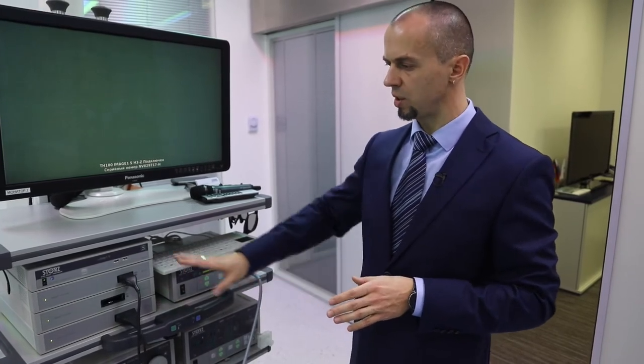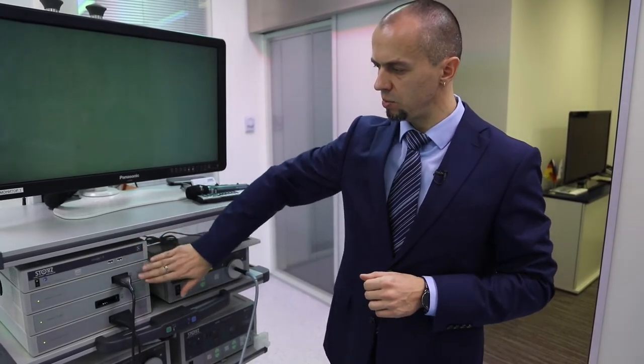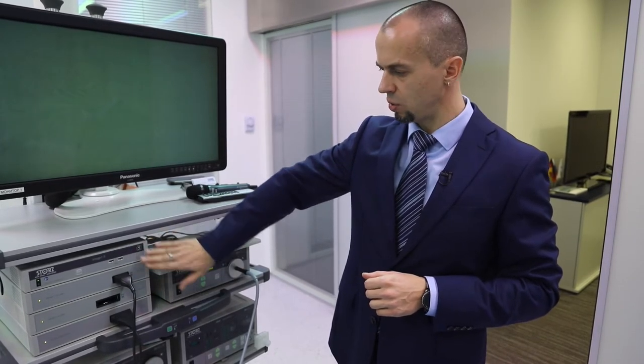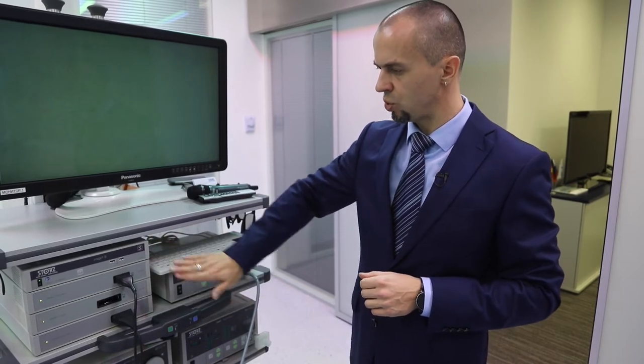Итак, мы собрали нашу платформу, соединили все модули, собрали систему на нашей эндоскопической стойке. Не забыли разместить их в правильном порядке. Самое главное, чтобы Connect модуль был сверху — это будет соответствовать общему имиджу исполнения приборов Karl Storz.